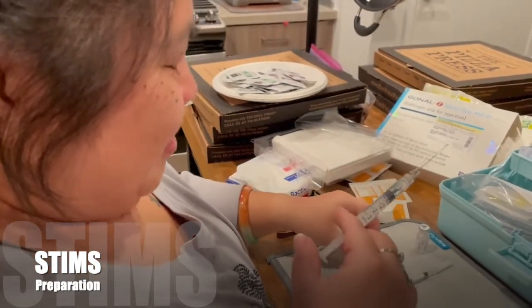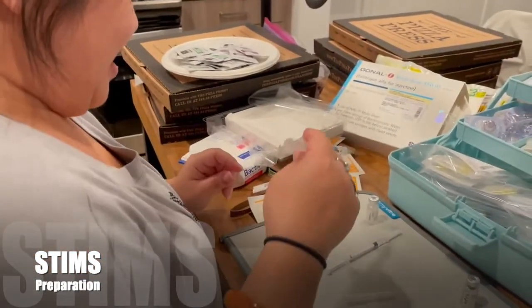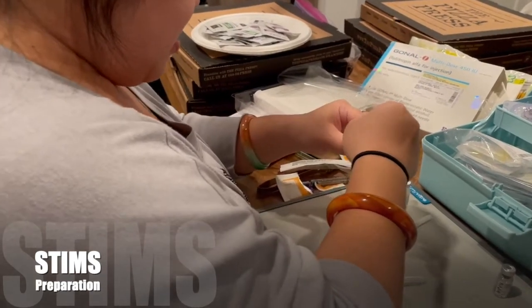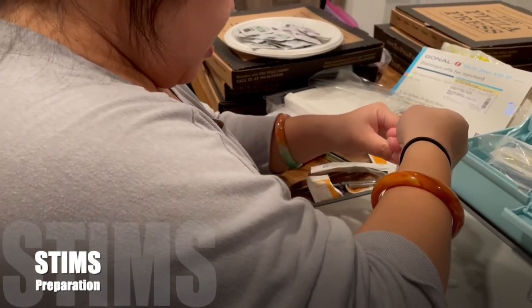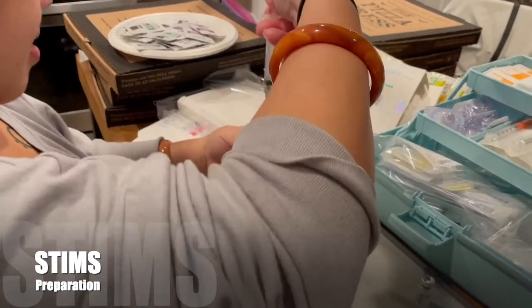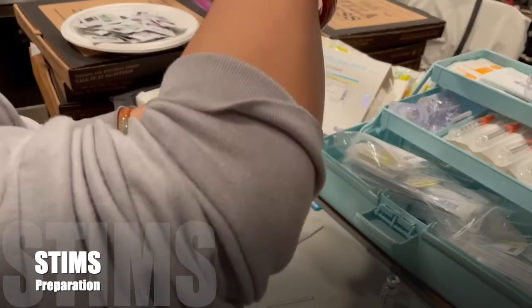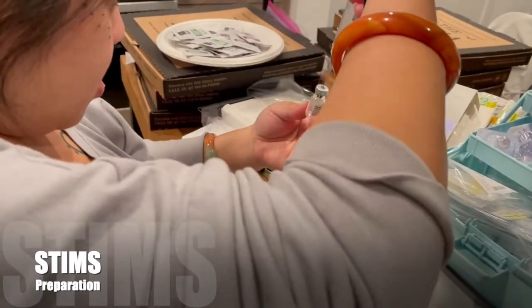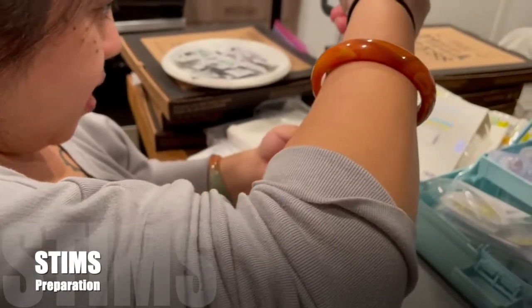It's vacuumed. That's probably just saline, right? Yeah, it's just saline. So you're fine. Damn, you're tall. There you go — you can turn it upside down and just leave it on the needle, go like this and shake it. Wow, it dissolves super fast. Now you're on your toes. Alright, so now this one — just turn it upside down, same thing. You should have a window.